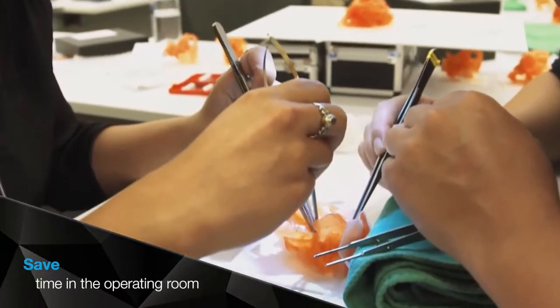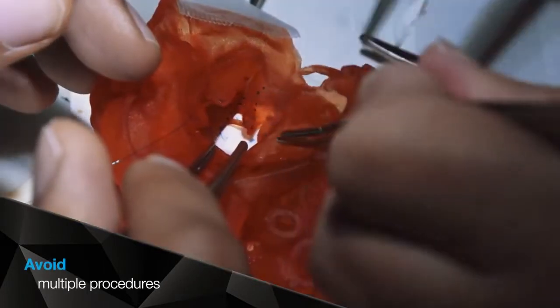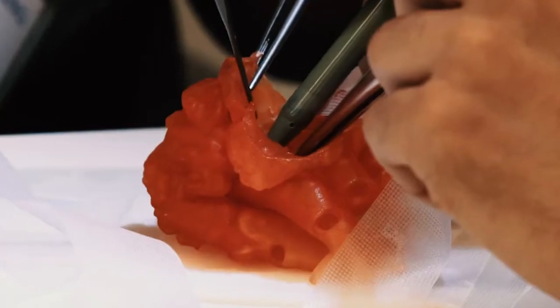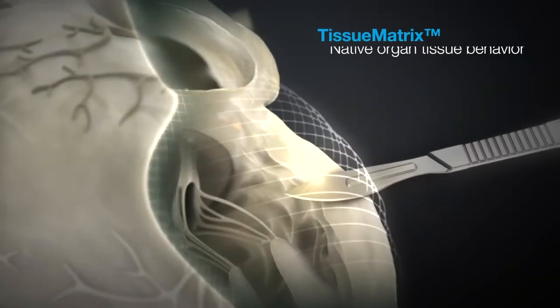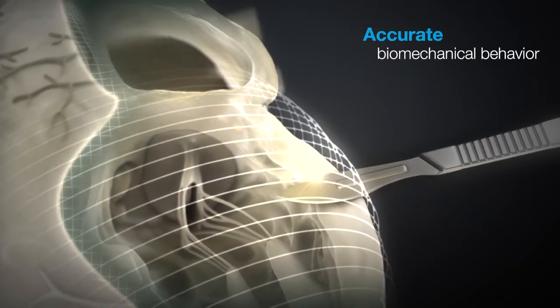Academic medical centers, hospitals, and medical device companies can create realistic testing environments and train in settings that are as close as you can get to the real thing. Experience the most consistent, accurate representation of your targeted pathology while suturing, cutting, inserting, and deploying devices.